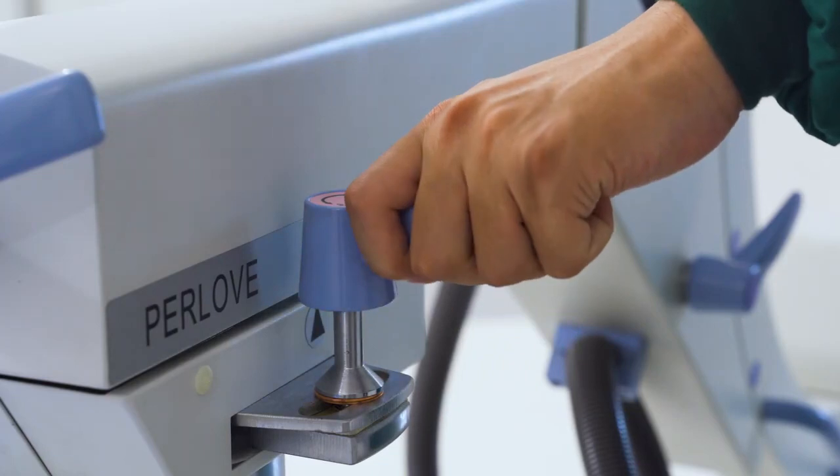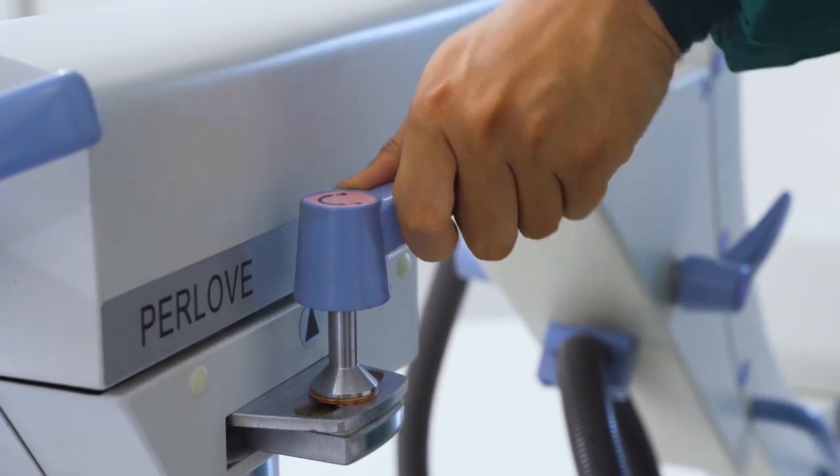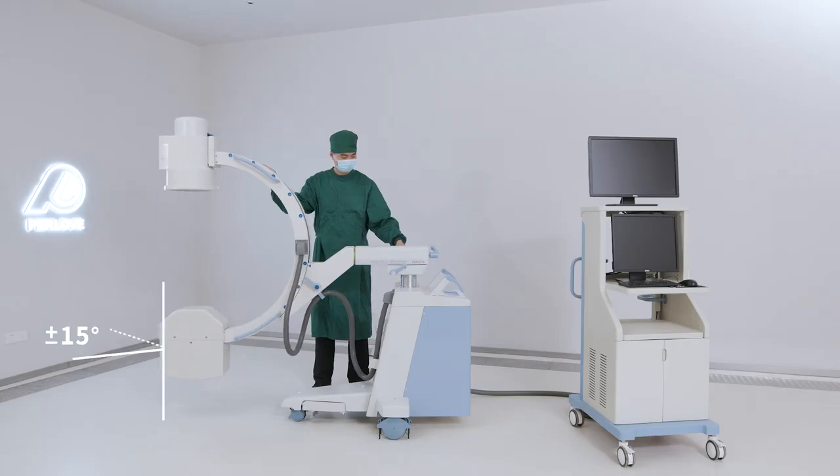This handlebar controls the C-Arm rotation around the vertical axis from plus 15 degrees to minus 15 degrees.